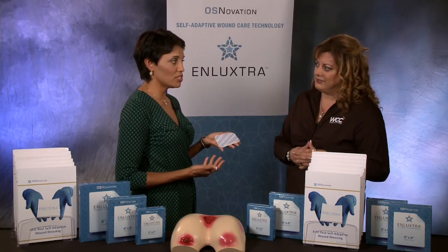Can you give me a rough estimate of how much this dressing costs? It's a mid-price range dressing. But when you get your patient stepped out, it's less than a dollar a day, Nancy. A dollar a day — less than a dollar a day for this dressing. It's very cost effective.